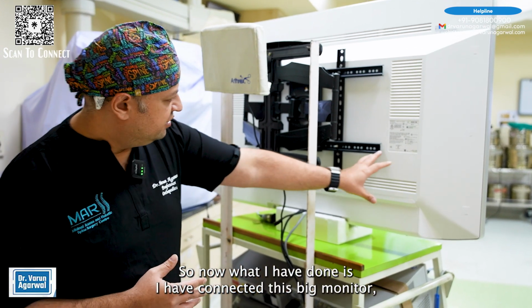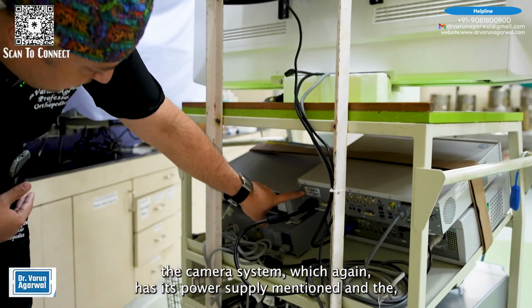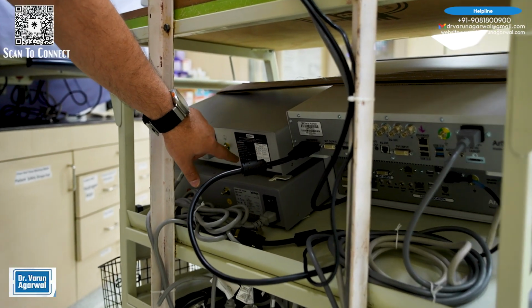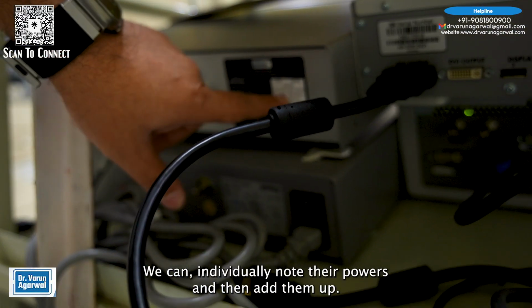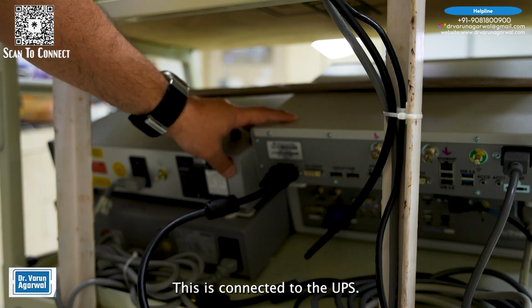Now what I have done is I have connected this big monitor, the camera system, which again has its power supply mentioned, and this is the bus system. We can individually note their powers and then add them up. This is connected to the UPS.